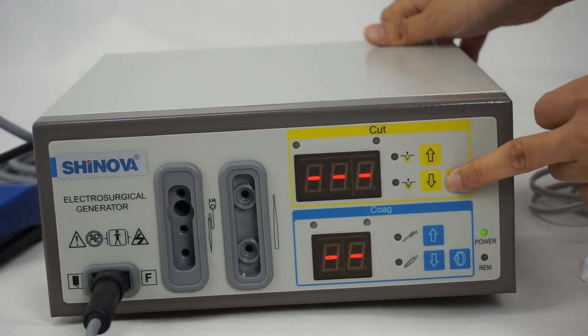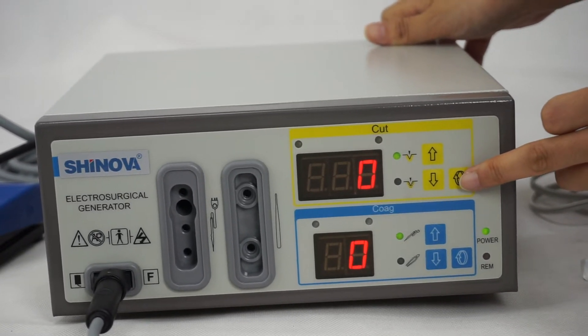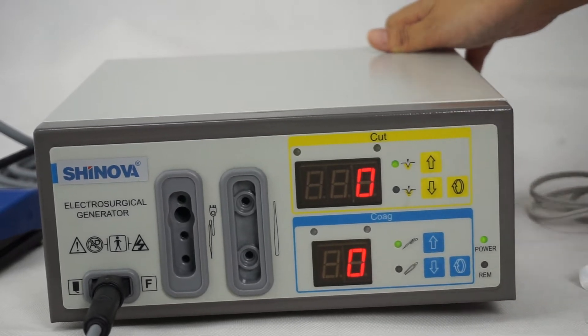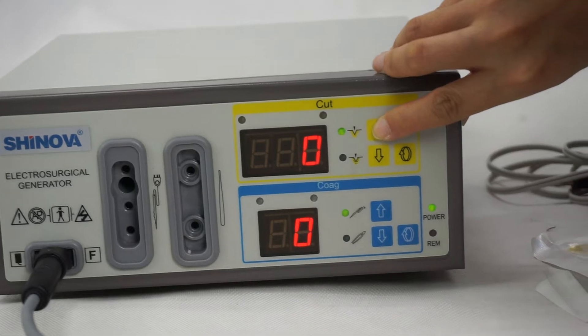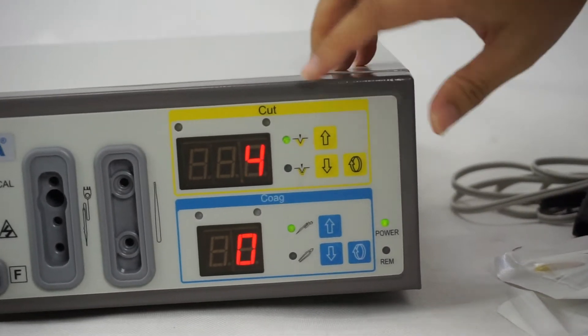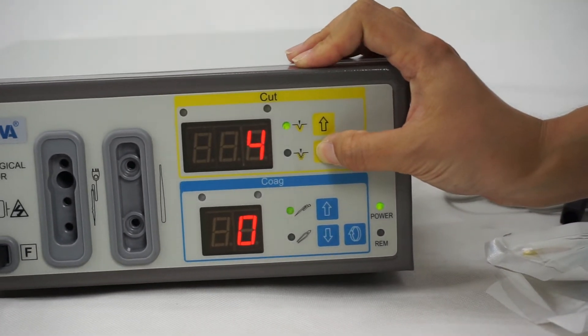Please press the key for cutting function. This key for increase the power. And this key for reduce the power.